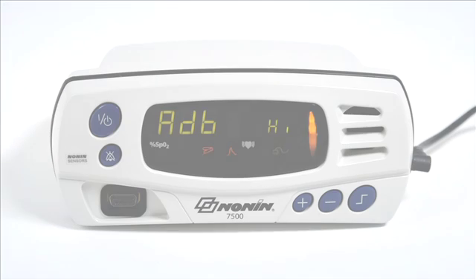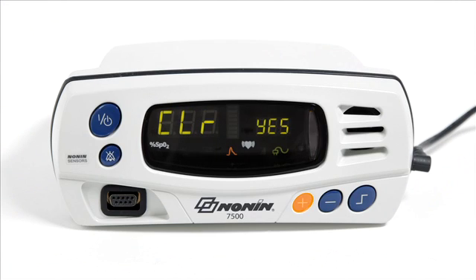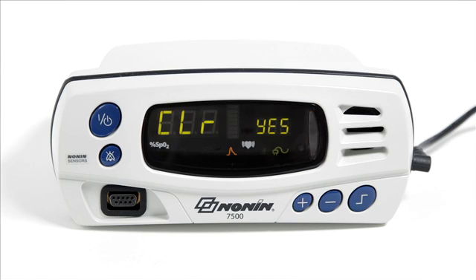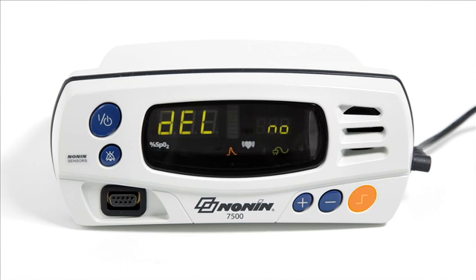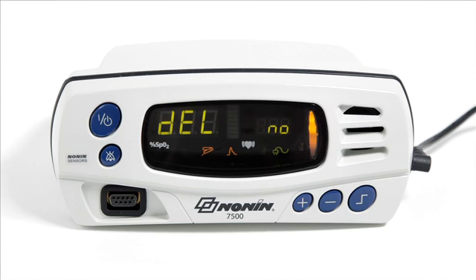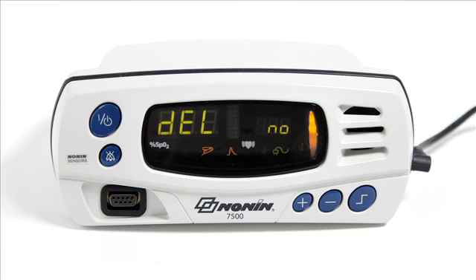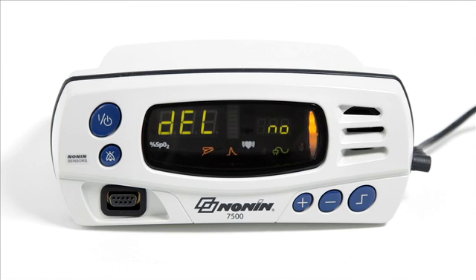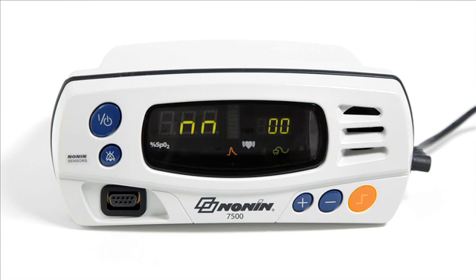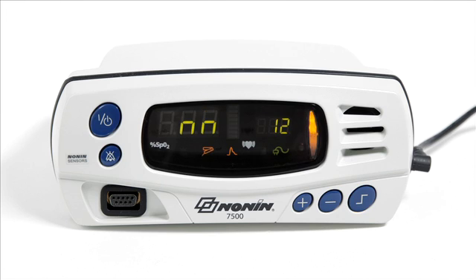Next, you will see the memory clear or store function. Select yes or no with the plus button and confirm by pressing the limits button when you see DELETE or DEL. You will only see DELETE if yes is selected to delete the stored memory. You will then see the year, month, day, hour, and minute settings screens in that order.